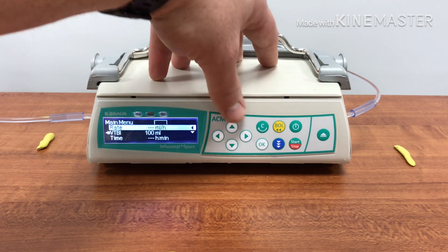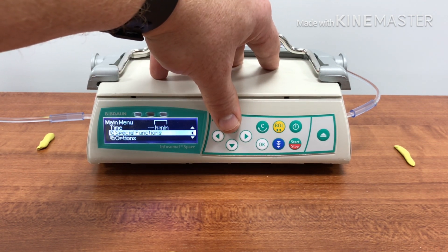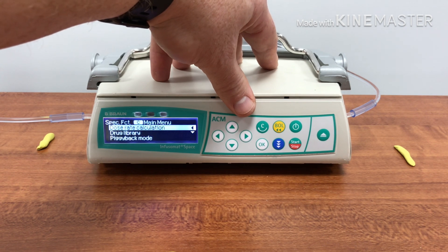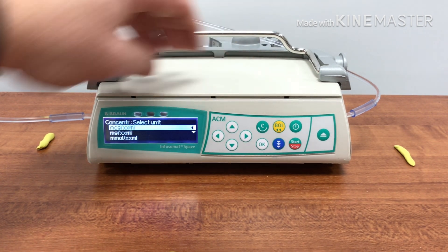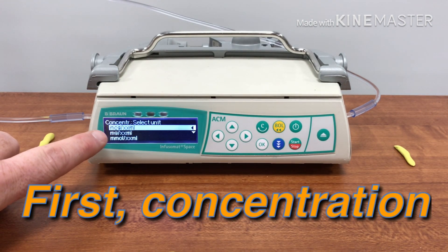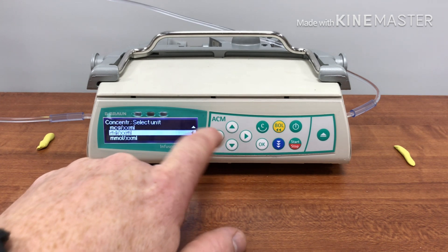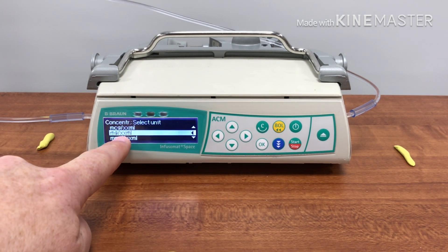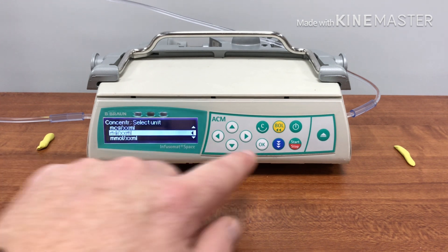From here you're going to scroll up to special functions. Choose special functions and then choose dose rate calculation. Now first we're going to build our concentration. In this situation we have one milligram in a known volume of fluid.